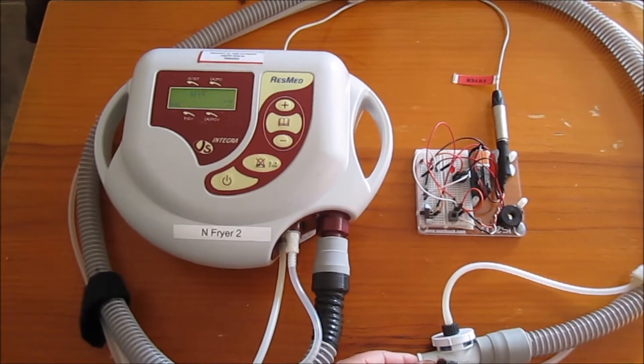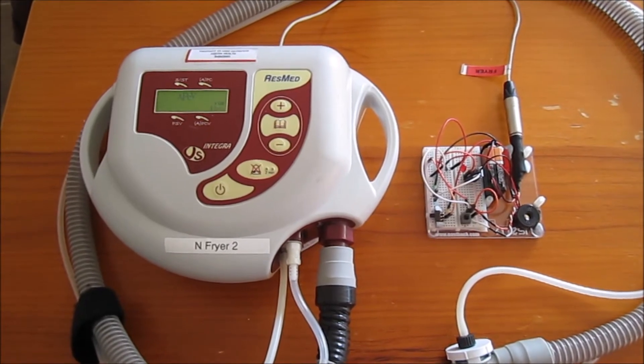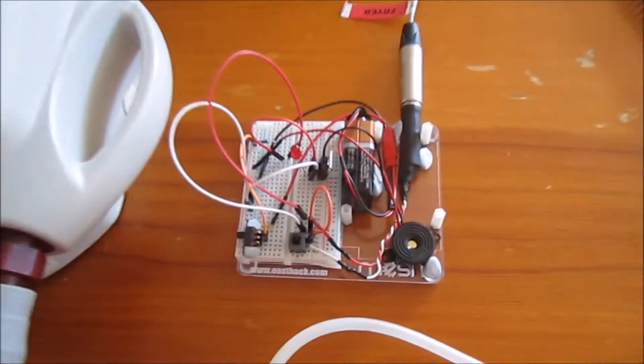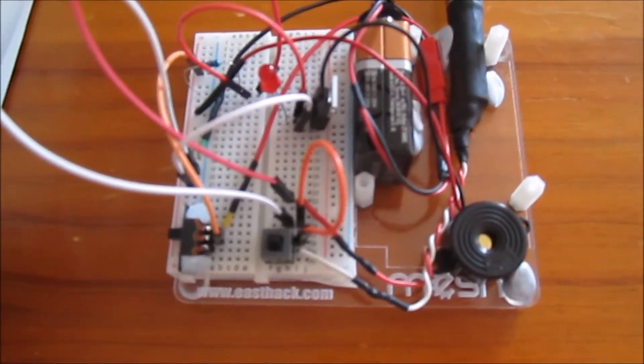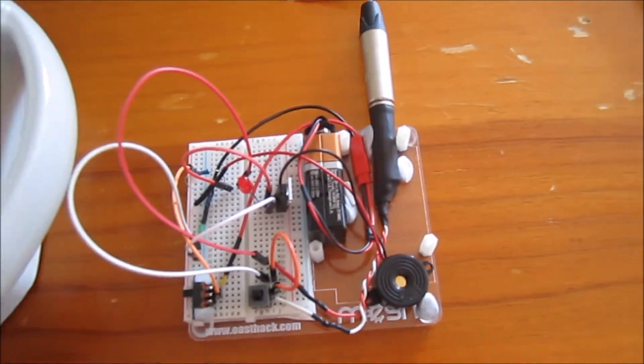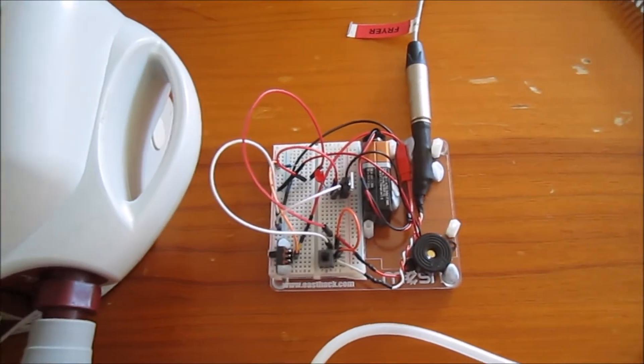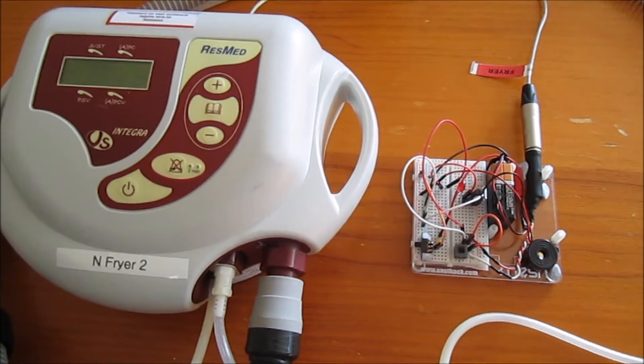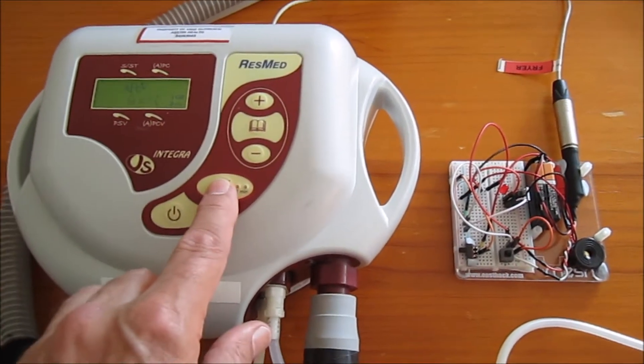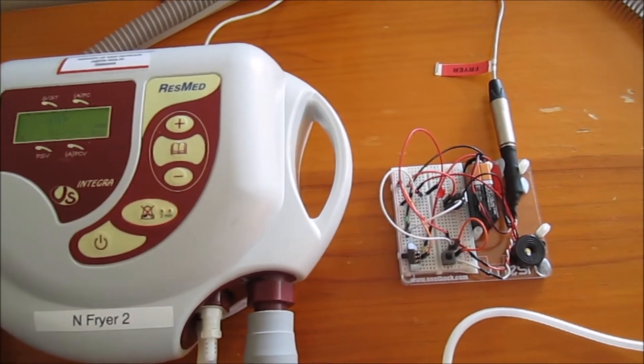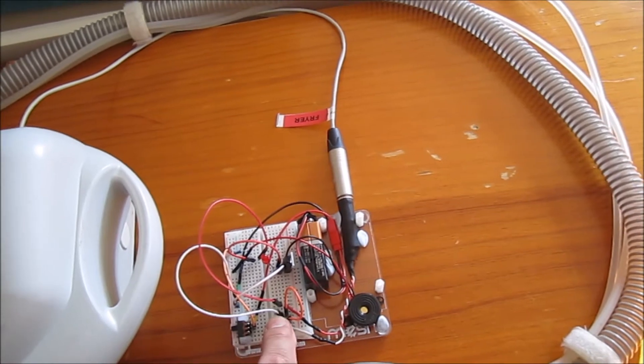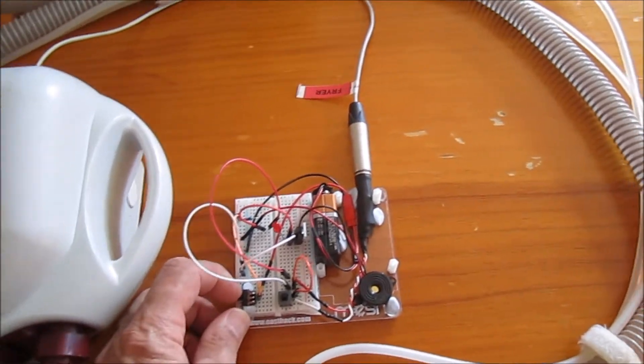This is our video of the ventilator working with an open-circuit alarm system. We put this together today. If I push the button, you'll hear it beep. If the ventilator alarms, which I'll let it do now, you can hear it going off. I can reset that alarm. I've tested a little test rig with a button here. It's got an on-off switch.